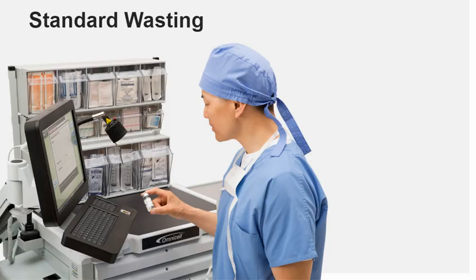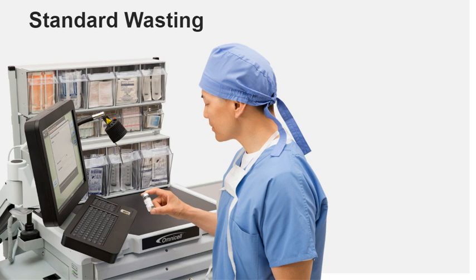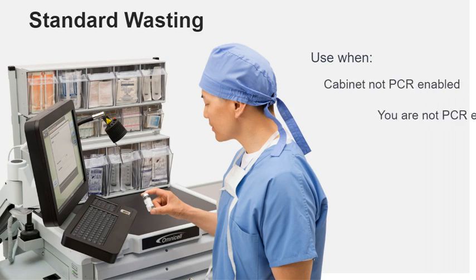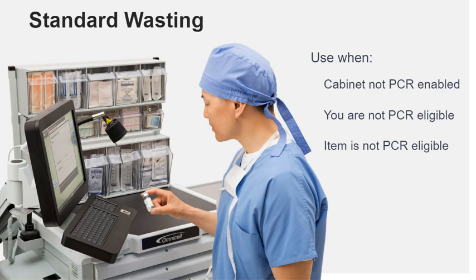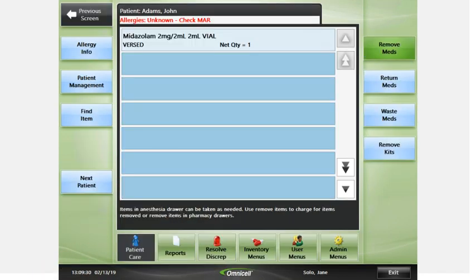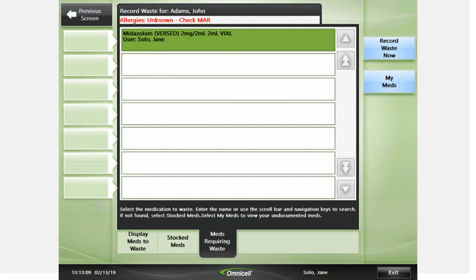Use the standard wasting procedure to waste an item when post-case reconciliation, PCR, is unavailable or disabled. Although it is recommended to record waste using PCR, in some cases it may not be possible — for example, if the cabinet you are using is not enabled for PCR, if you are not eligible to use PCR, or if the item you need to waste is not eligible for PCR. To perform a standard waste, select a patient from the list, then from the patient screen press Waste Meds. Select the medication to waste and press Record Waste Now.